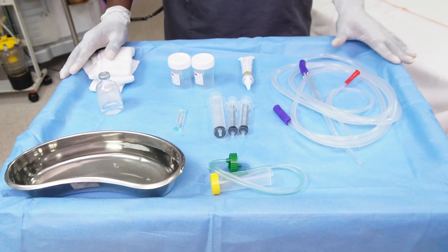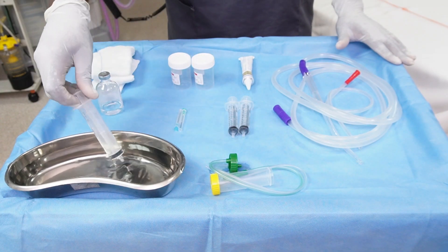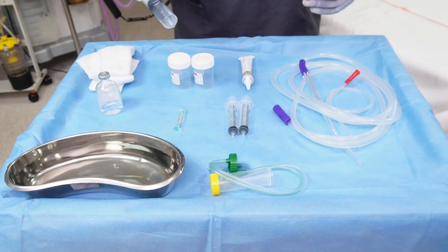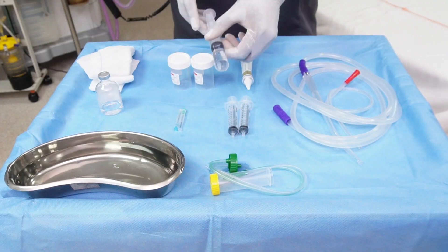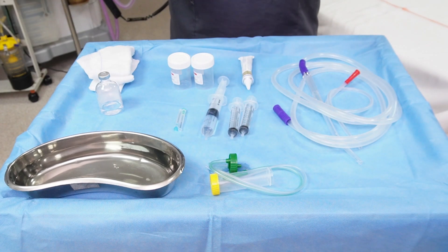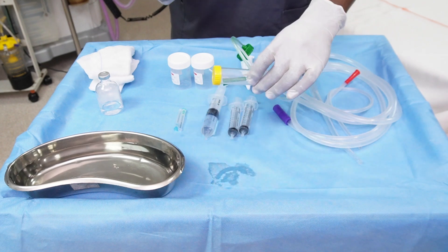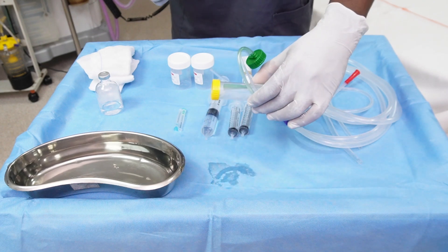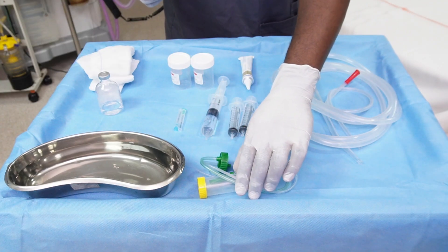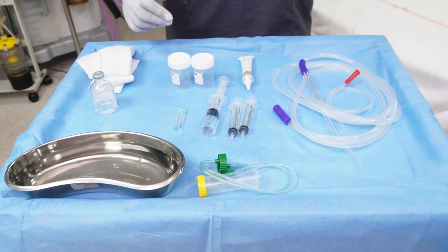You will need syringes to withdraw the normal saline to be pushed into the airway, whether you are collecting bronchial wash or bronchoalveolar lavage samples. These samples are collected in a mucus trap, which is connected to the suction on one end and to the bronchoscope on the other.